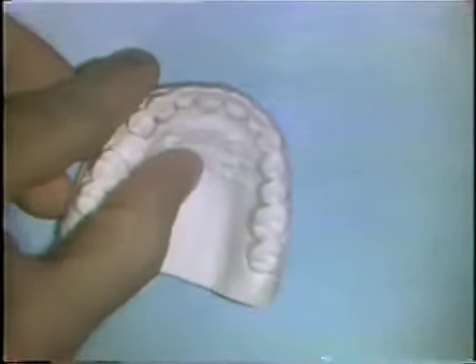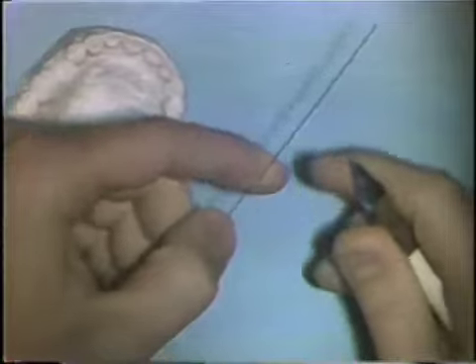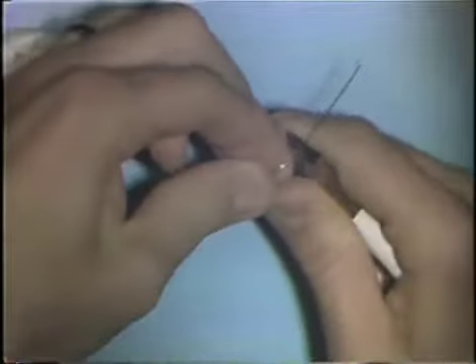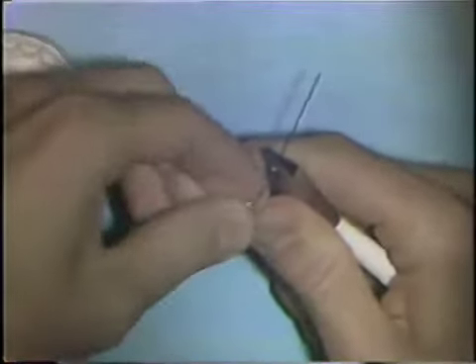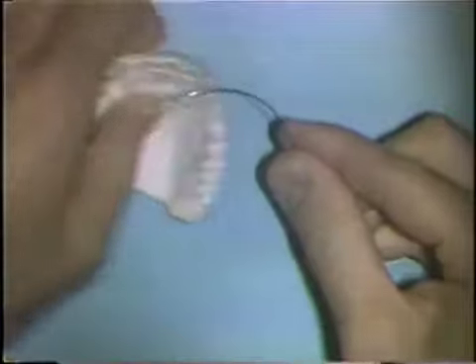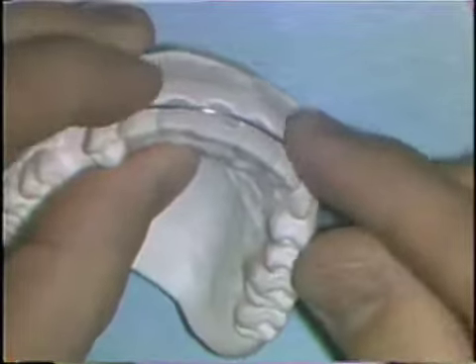The first step is to bend a smooth, continuous curve that contacts the labial surface of each anterior tooth along the pencil outline. The wire is placed in the beaks of the plier and a smooth curve is bent. You place the wire in contact with the work model and see if you can get it to adapt to two or three teeth on the model. Here it adapts to the cuspid and the lateral incisor.